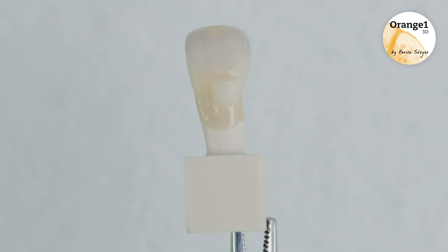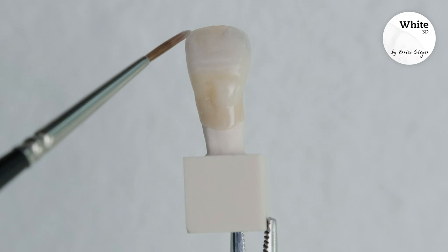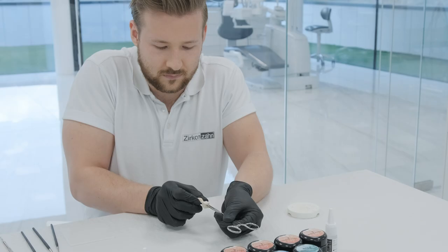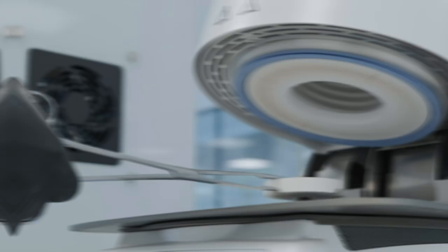After the all-in-one characterization technique, it is unnecessary to further characterize the zirconia structure, and the following steps are optional.